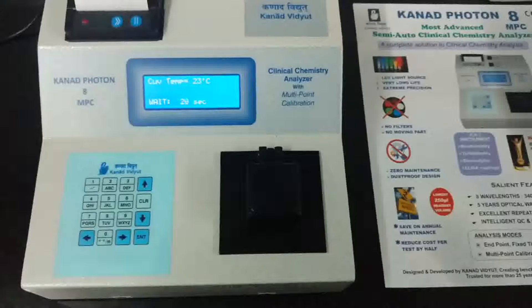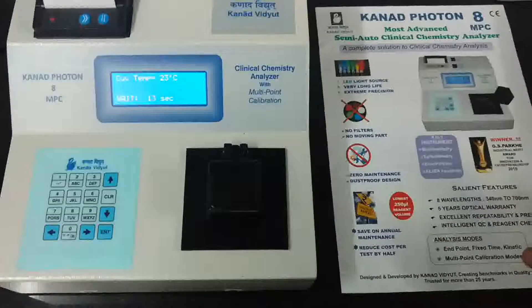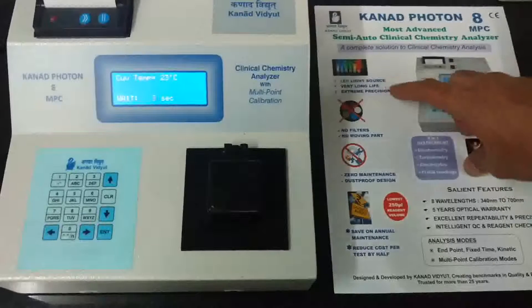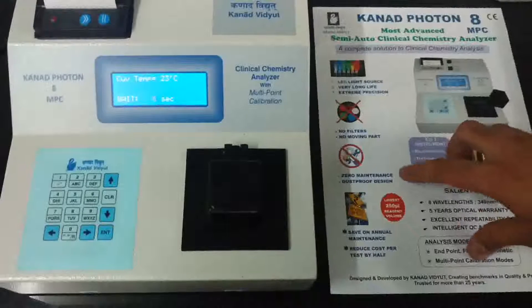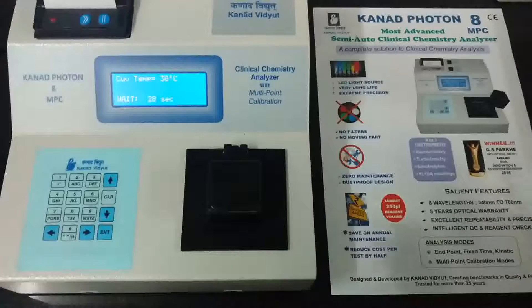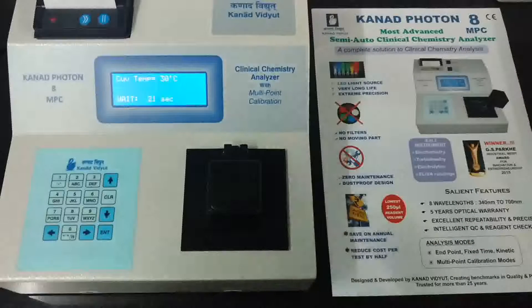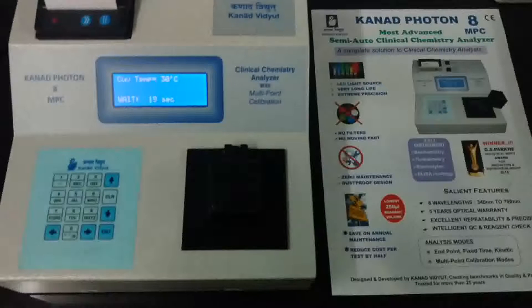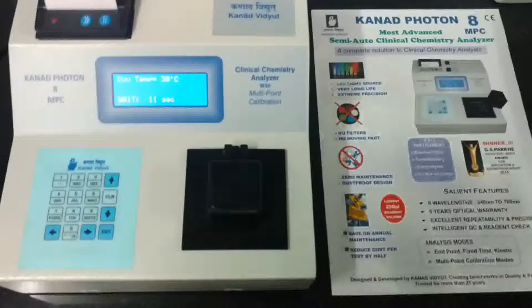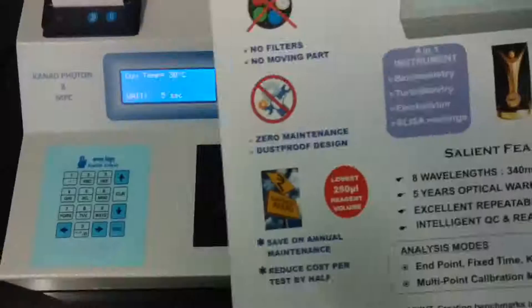Since we set 37°C, the machine will come to 37°C first and then ask for distilled water and sample. In the meantime, let's go through the basic features and advantages of this machine. It is an LED-based machine with no filters and requires zero maintenance, as it is dustproof with no mechanical movements inside. All tests are done at only 250 microliters reagent volume, significantly reducing cost per test.